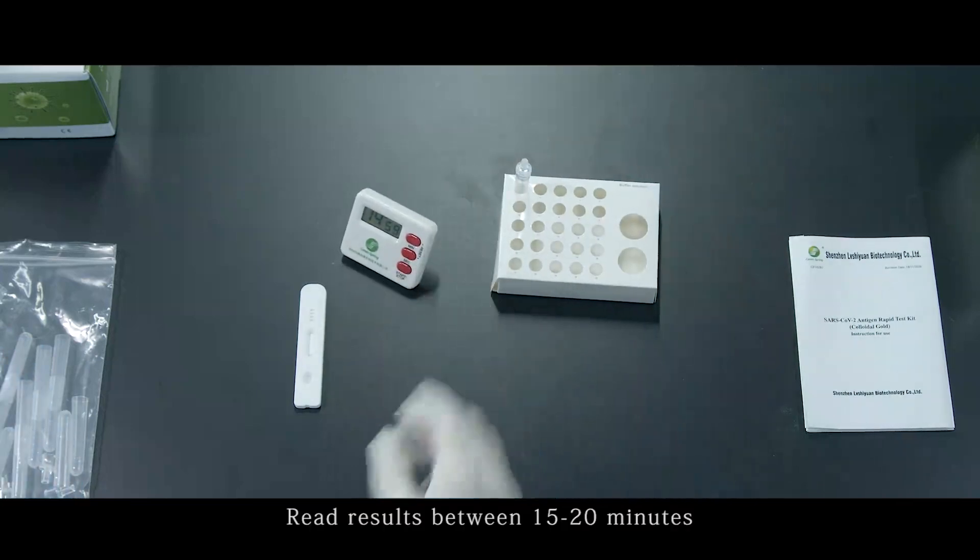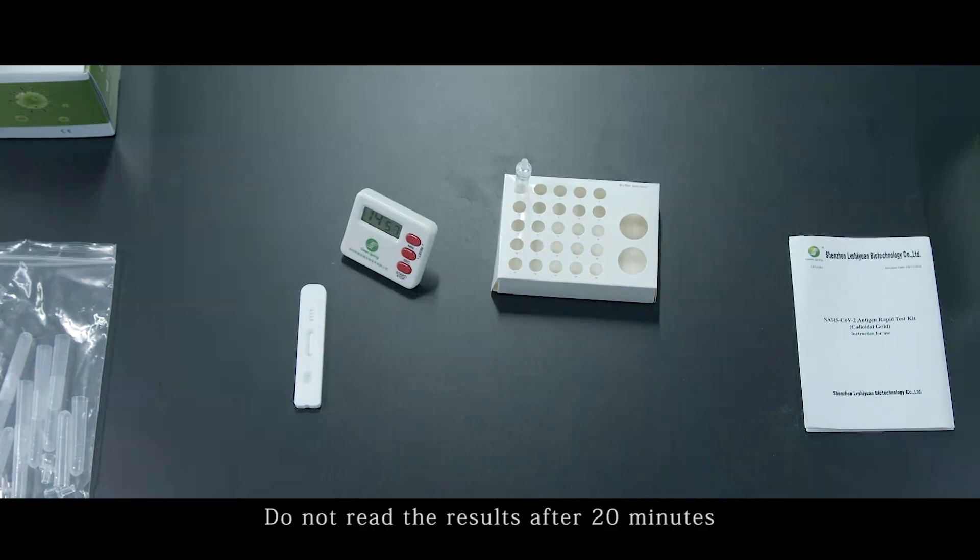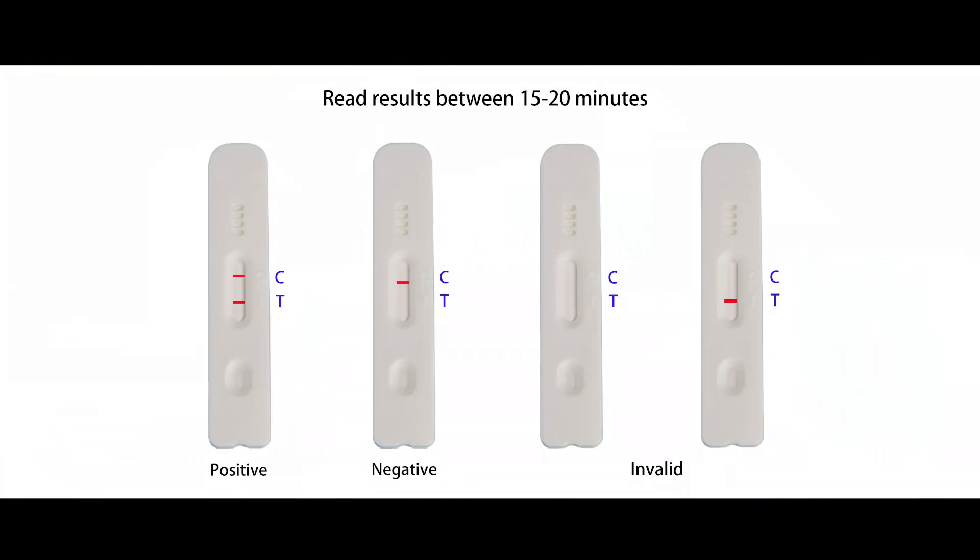Read results between 15 to 20 minutes. Do not read the results after 20 minutes.